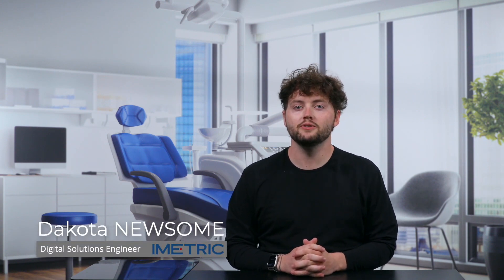Hello and welcome everyone. I am so glad that you've chosen the iCam. Today I will be showing you how to properly unbox and set up your iCam. So let's go ahead and get started.